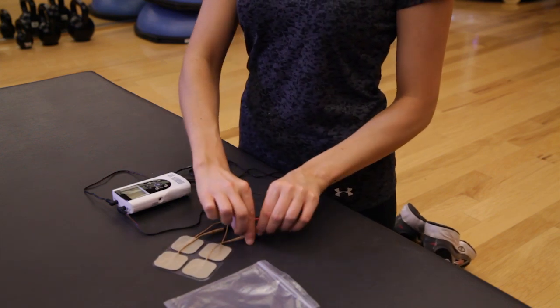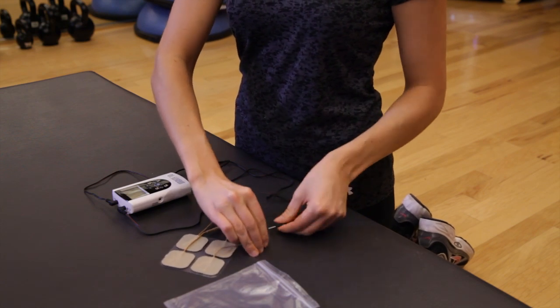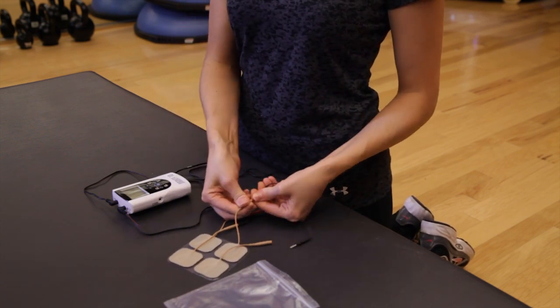Disconnect the lead wires from the electrodes and place the electrodes back into the package they originally came in until next use.